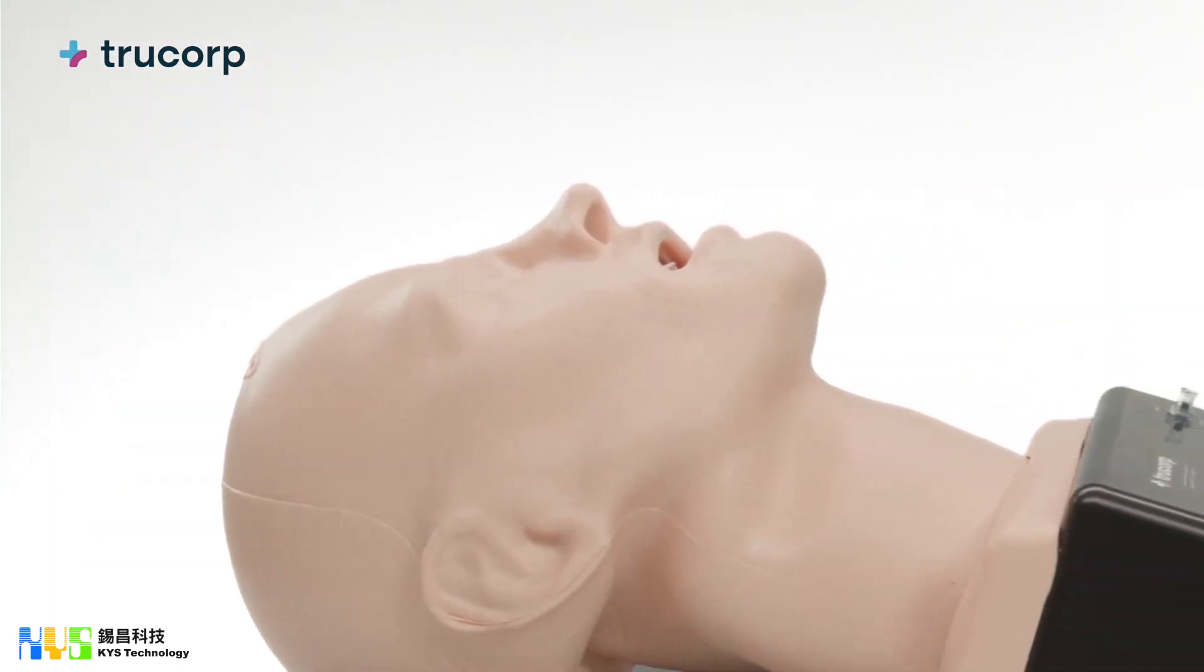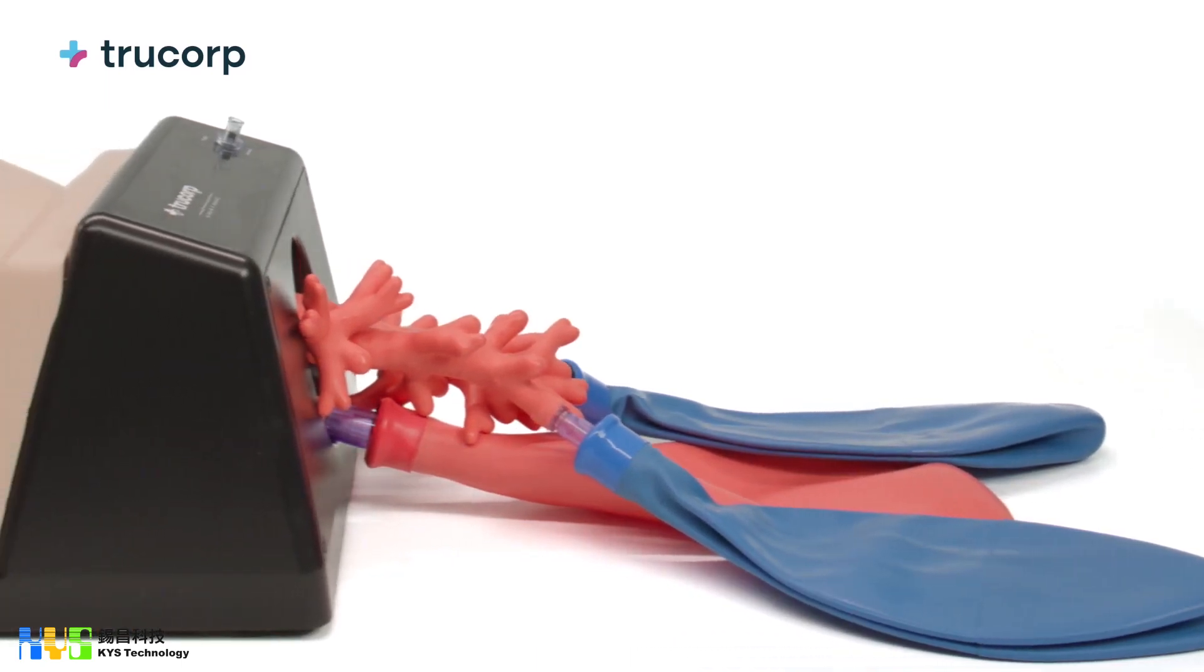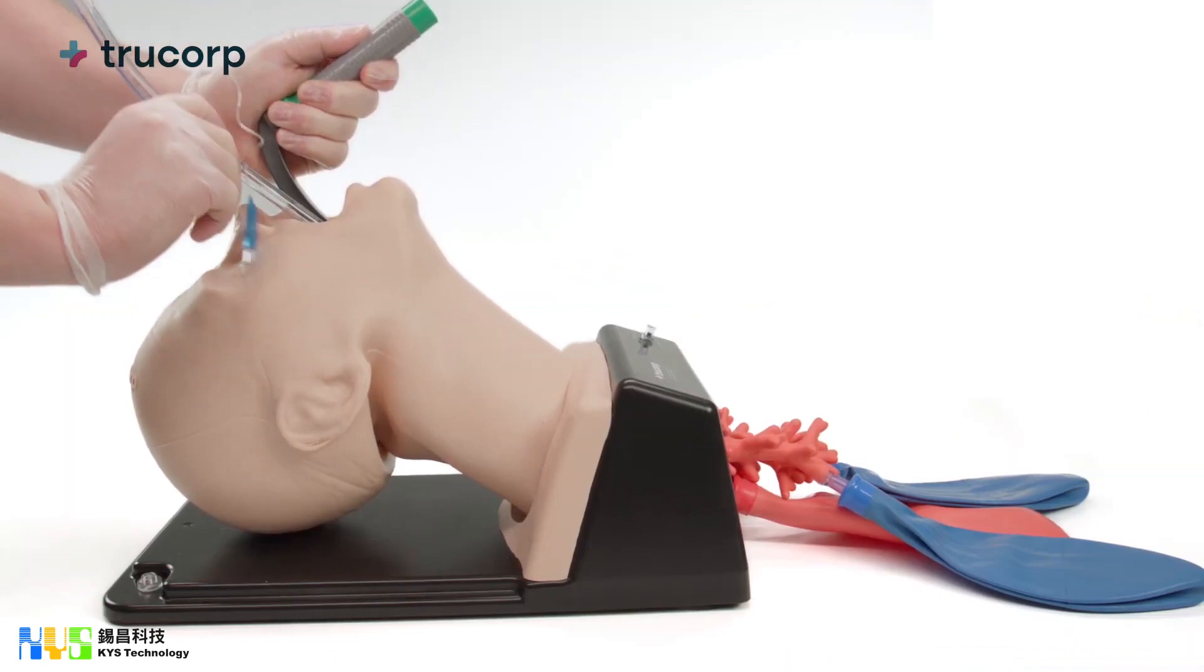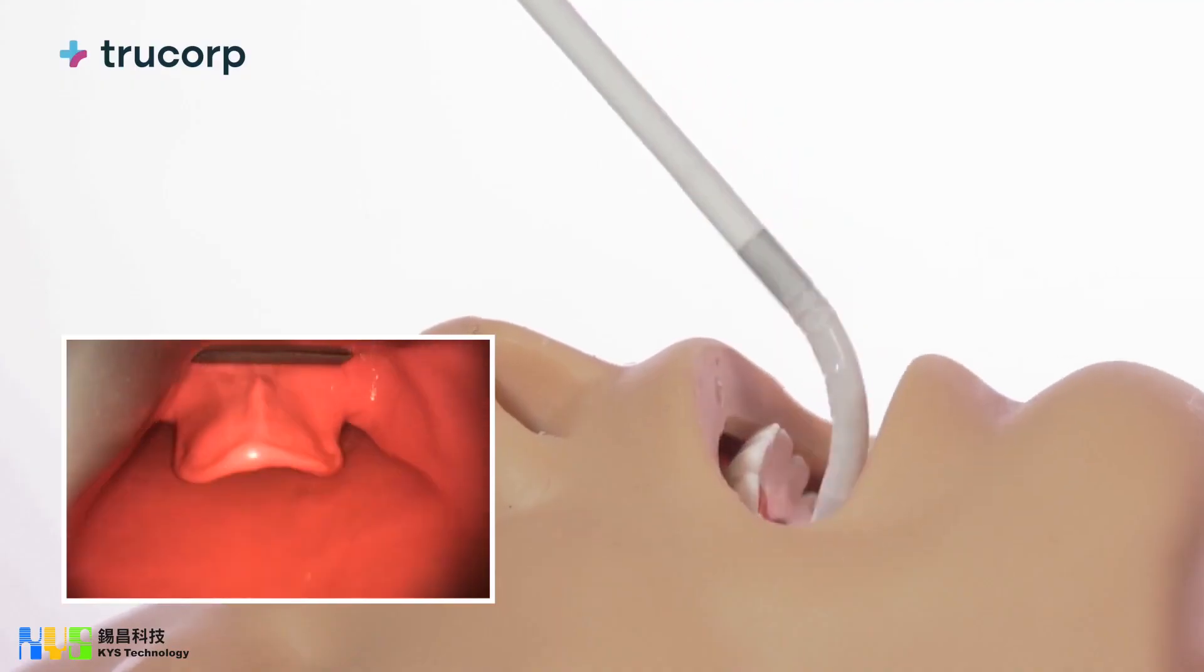This product features anatomically correct internal features from the nasal passage and airways to the fourth generation bronchi. Suitable for training in diagnostic bronchoscopy including awake fiber optic examination.